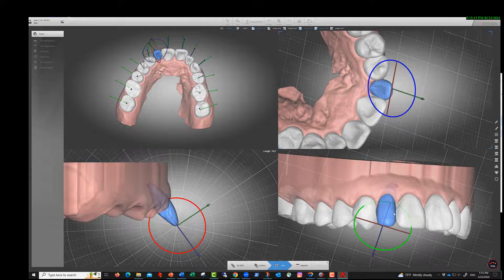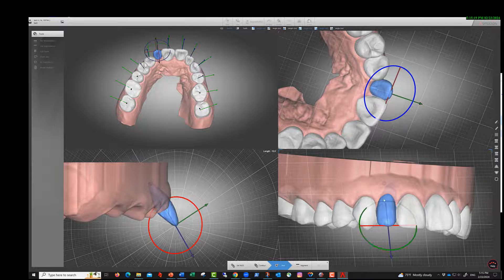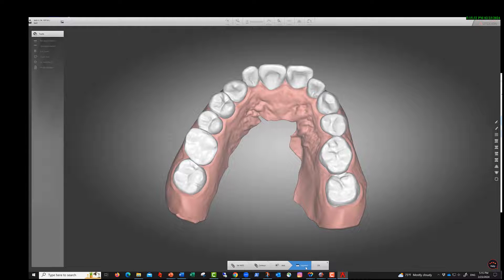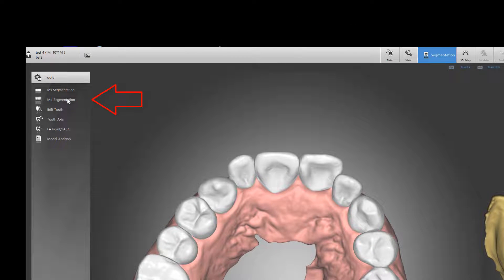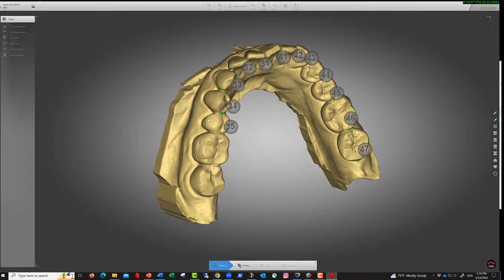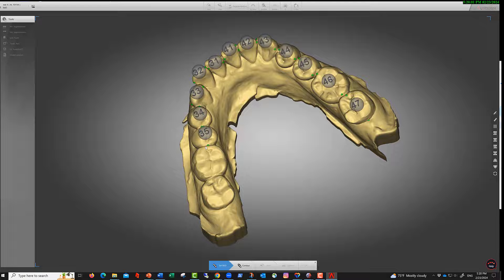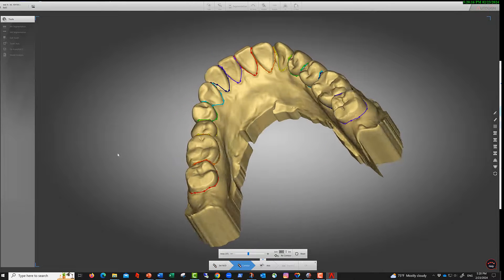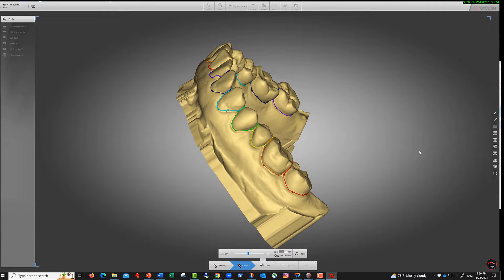Let's assume we're happy with this and segment everything. The maxilla is now segmented — click okay. Then we do the mandibular segmentation manually. There was a problem at teeth 35, 36, and 37 with the contour, but we fixed that. We'll accept the contours for the sake of time.